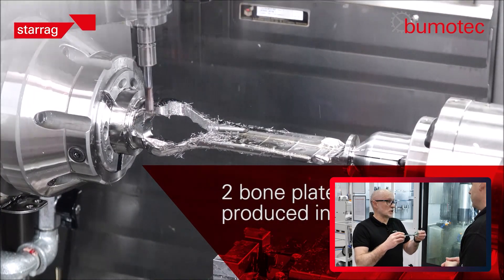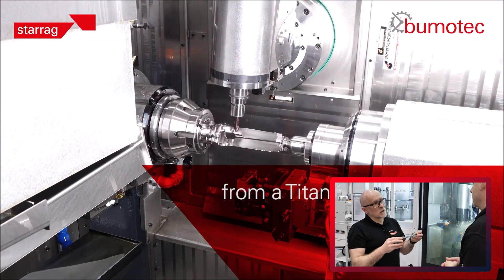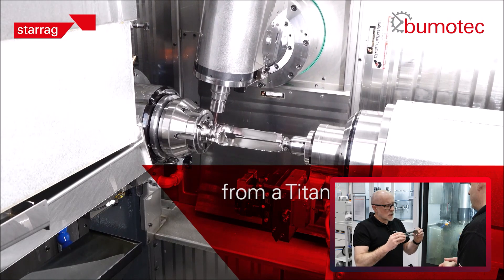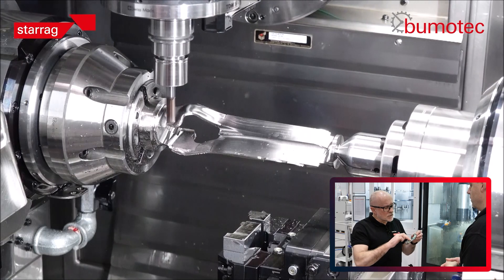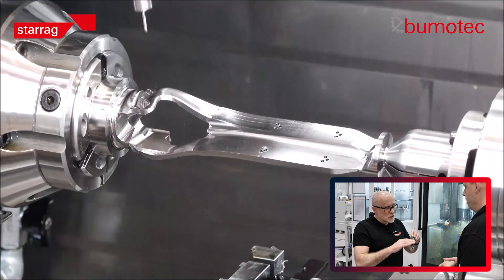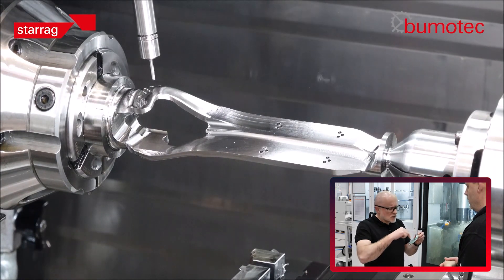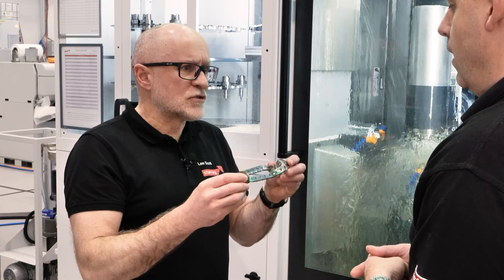For sure — it's crying out to vibrate and chatter. So we can apply tension and compression to the components to try and tune out the chatter frequencies. Likewise we can apply them to the spindle range to try and smooth out the harmonics and chatter frequencies. You can see you require a very good surface finish; there are also no burrs allowed on this component. It has to come off the machine completed, with a lot of fairly complex shaped holes and complex machining in true five-axis.